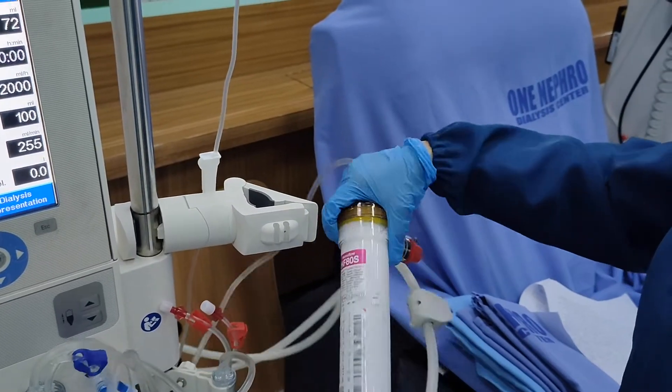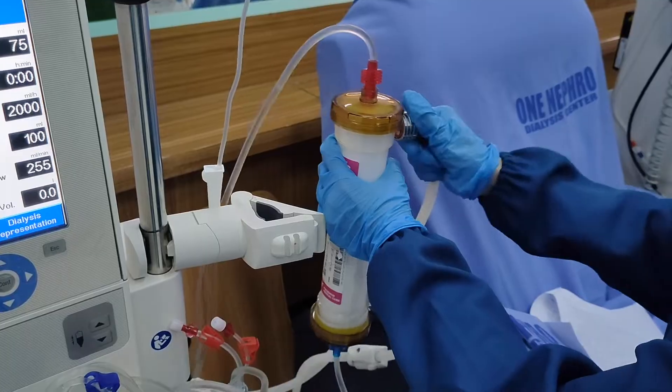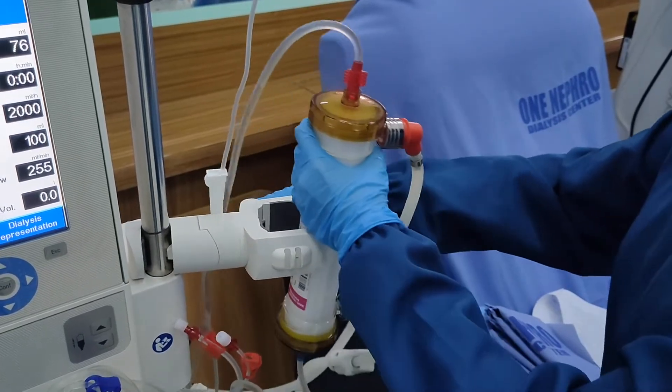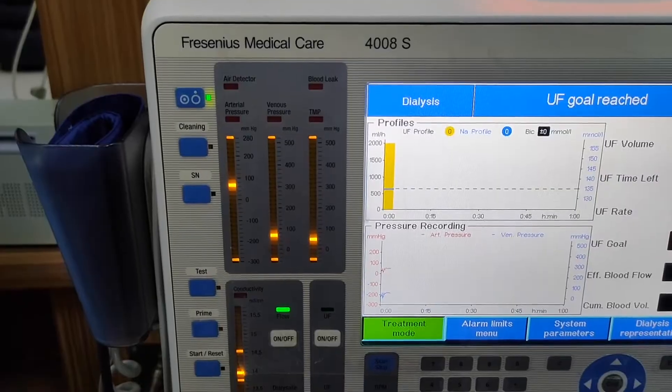Once there are no air bubbles seen, revert the dialyzer, which means red must be up. Make sure there are no kinks on the couplings and the lines.